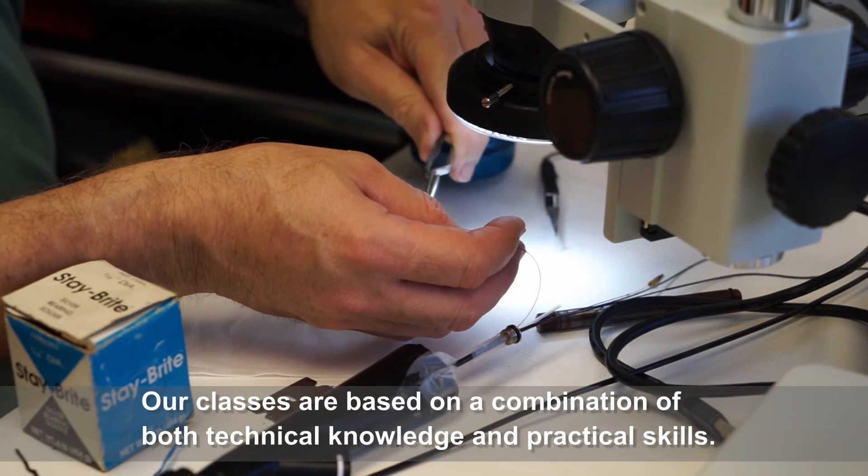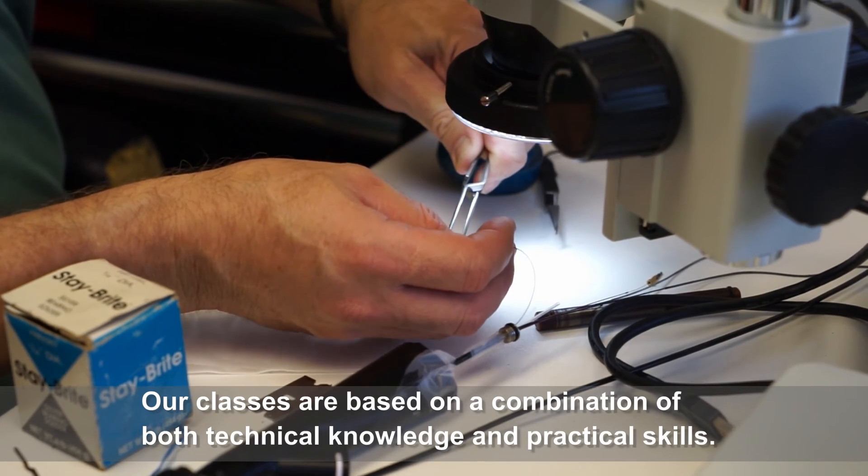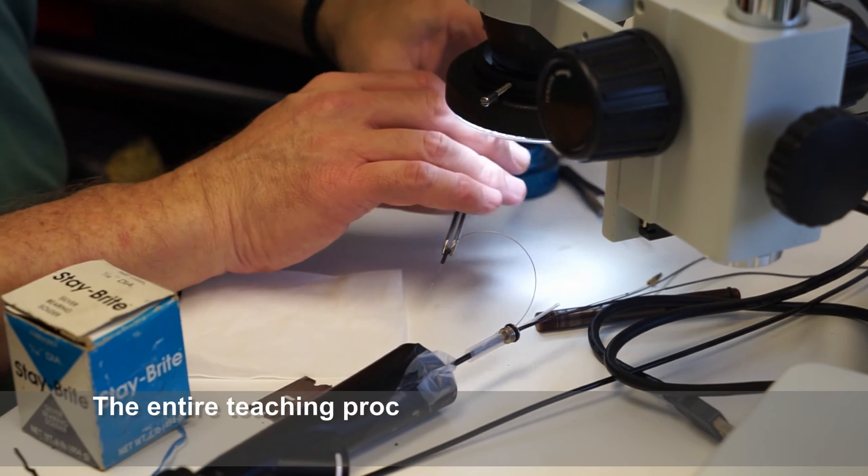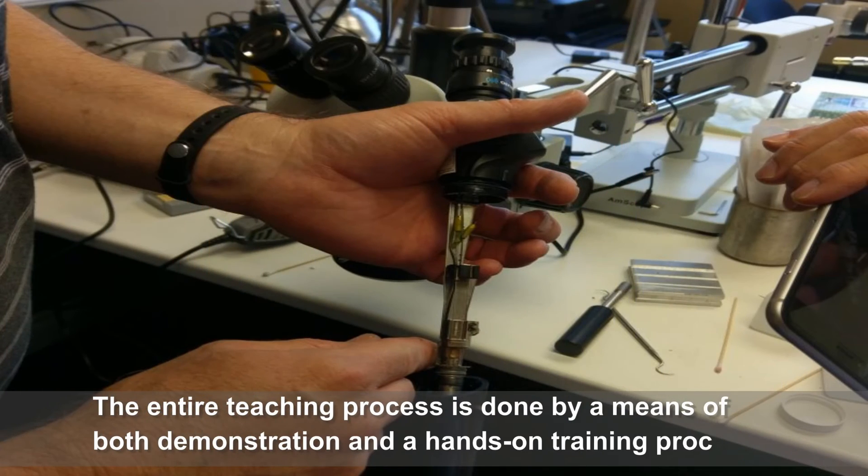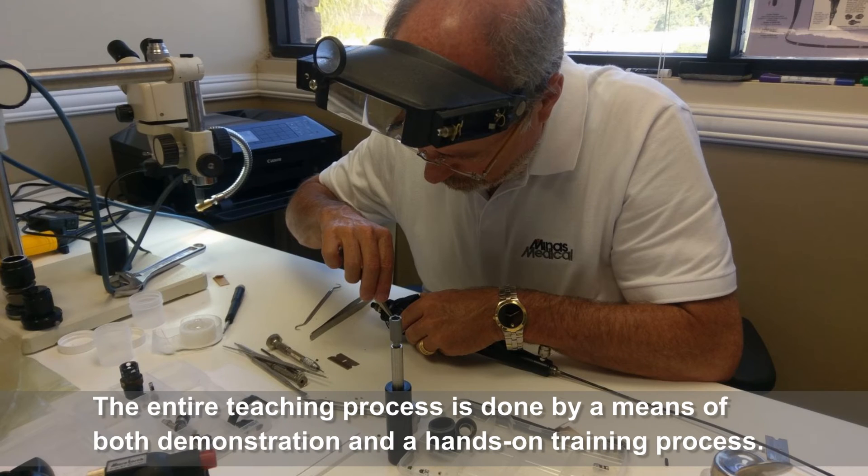Our classes are based on a combination of both technical knowledge and practical skills. The entire teaching process is done by means of both demonstration and a hands-on training process.